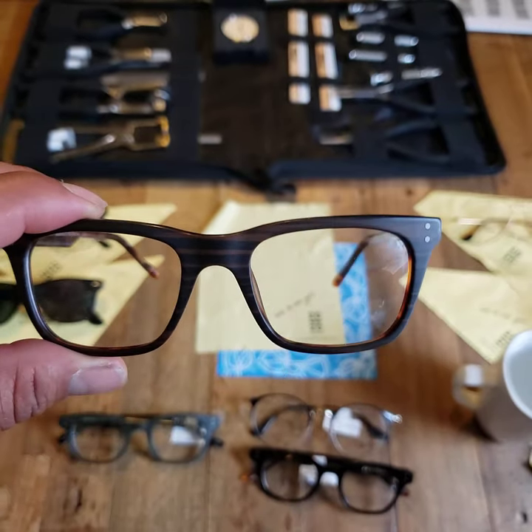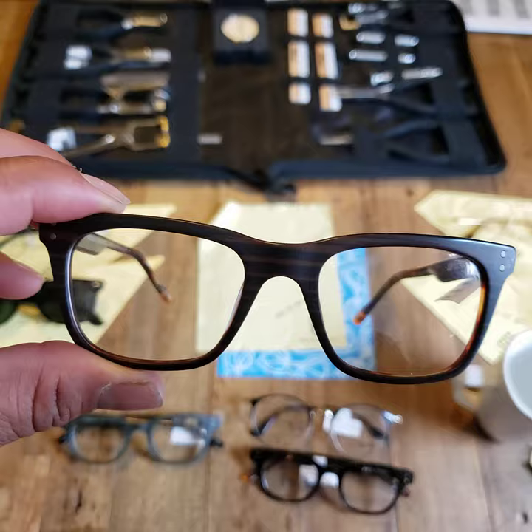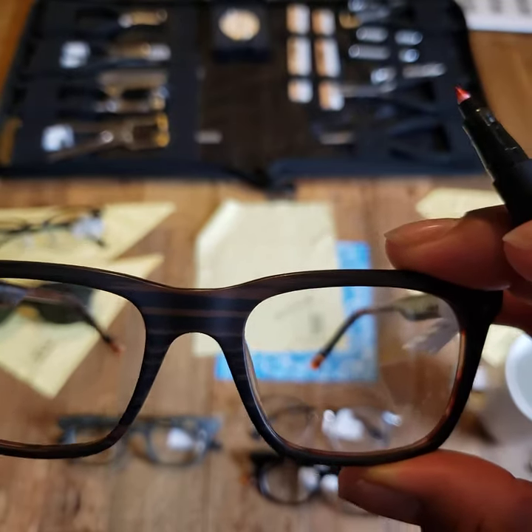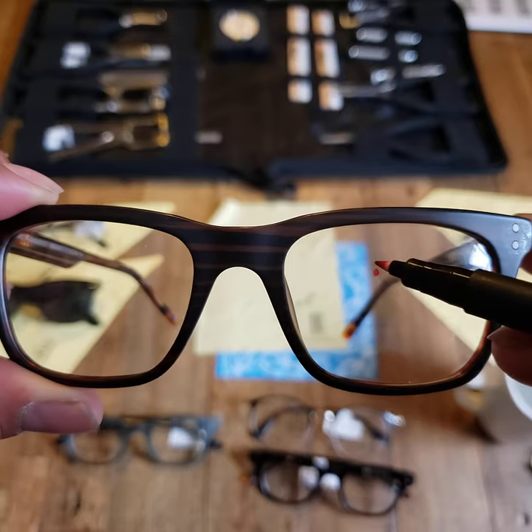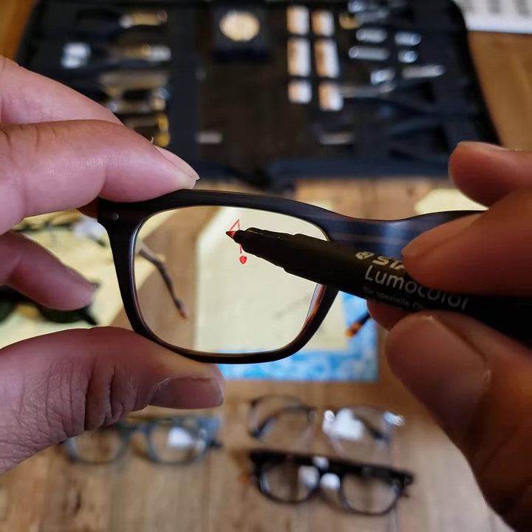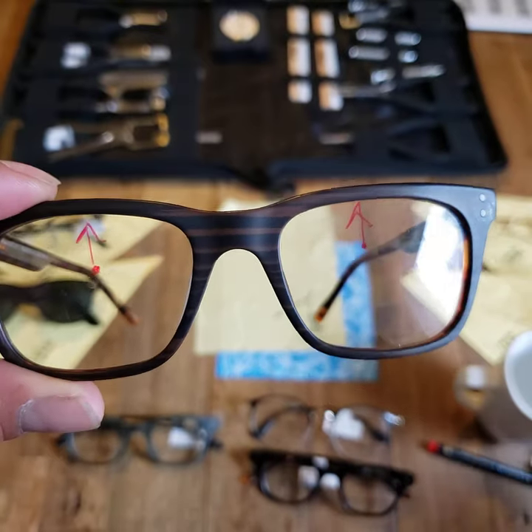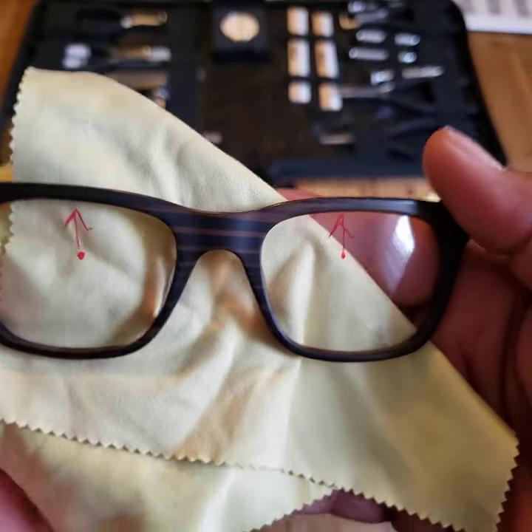When we feel that way, one of the biggest things we can do is when you're looking in the mirror, try your best not to focus on your eyebrows or your nose. Those facial features — our faces are asymmetrical. So though we love our eyebrows to be perfectly even on both sides, we know that's not true. What we want to focus on is our eye where it sits to the top of the frame on each side. That will help you gauge whether one side is higher or lower, better than using your eyebrows to determine that.